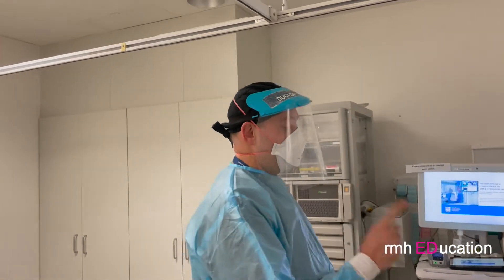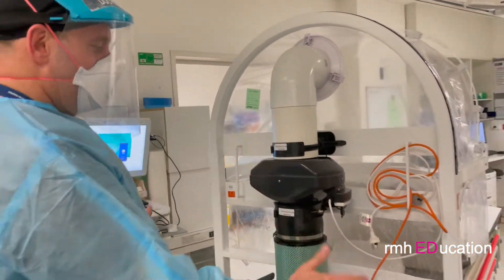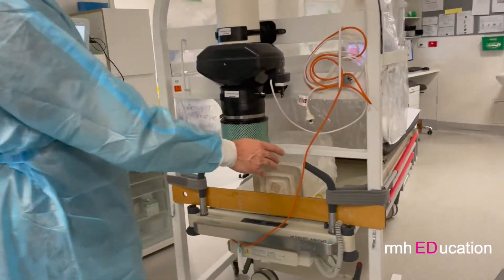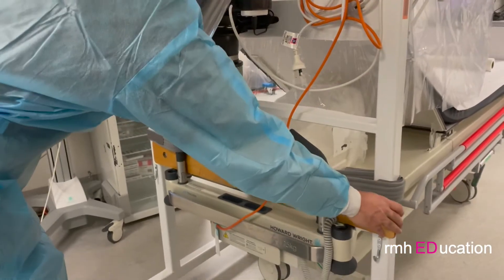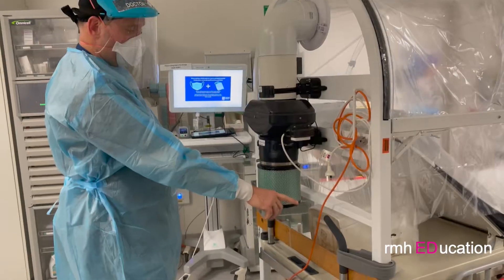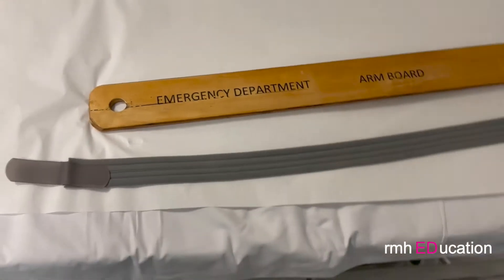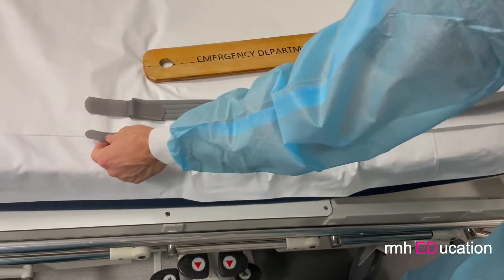A method of moving a patient using the McMonty hood is to use the armboard as a strut along the base of the bed, with two Velcro sling collar straps. Armboard and two straps.